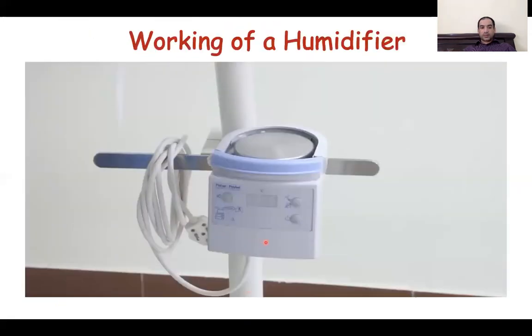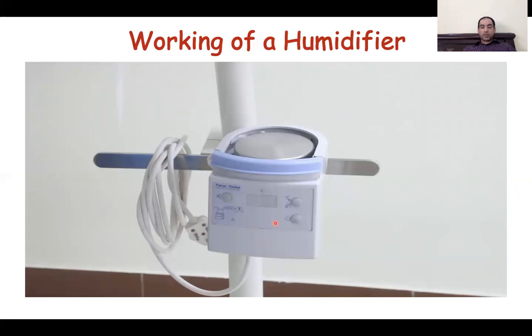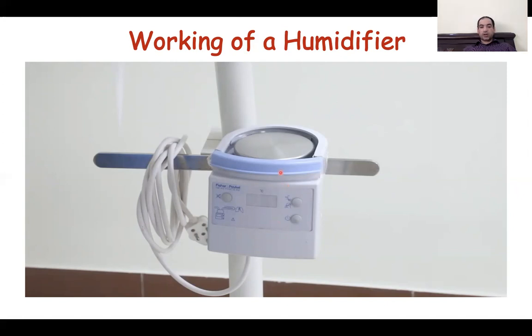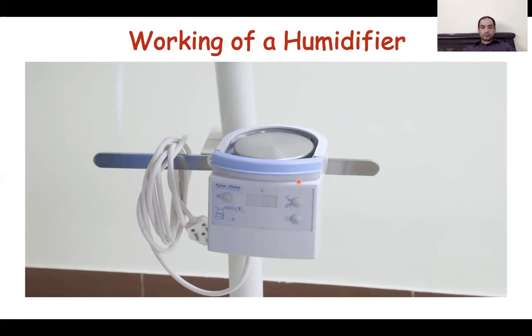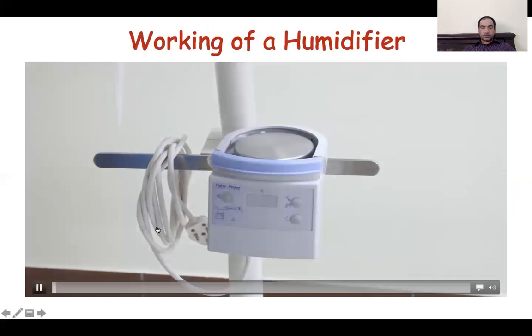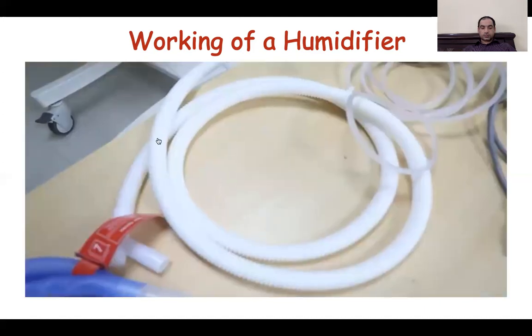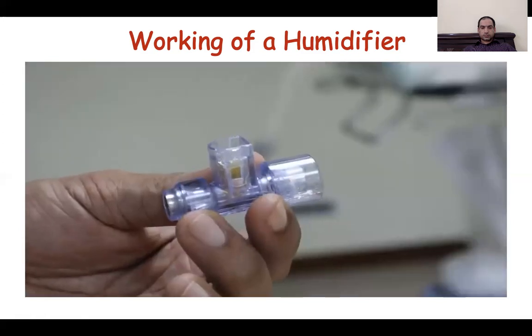In this video we will be explaining how a humidifier works. We are not promoting any brand — this is what was available with us and we do not promote any brand in this video. The humidifier is connected to the power supply and this is the humidifier chamber. The blue ones are the inspiratory limbs, this is the expiratory limb, this is the white Y-piece connecting the inspiratory and expiratory limbs, this is the flow sensor, and this is the pressure sensor.